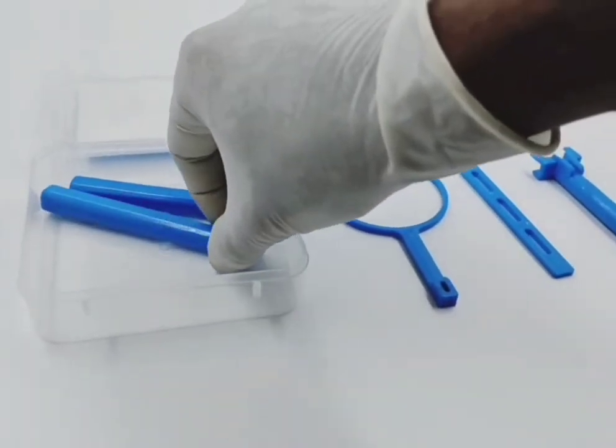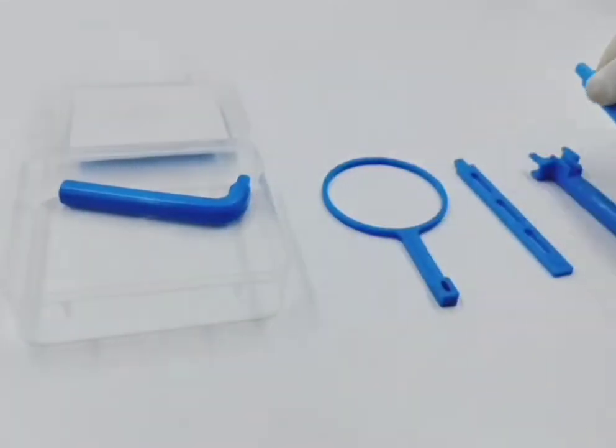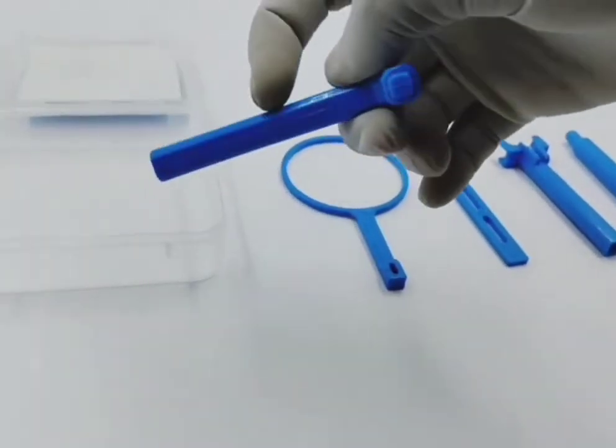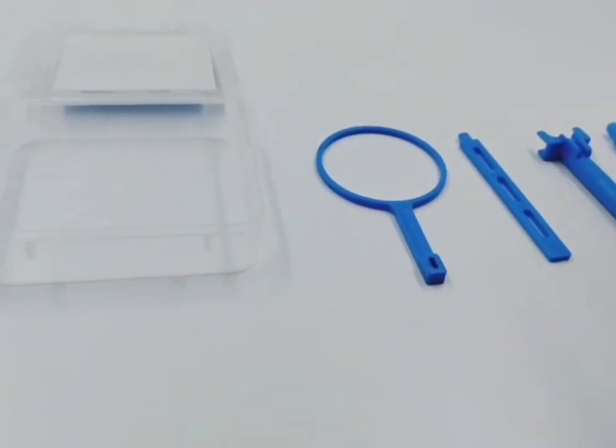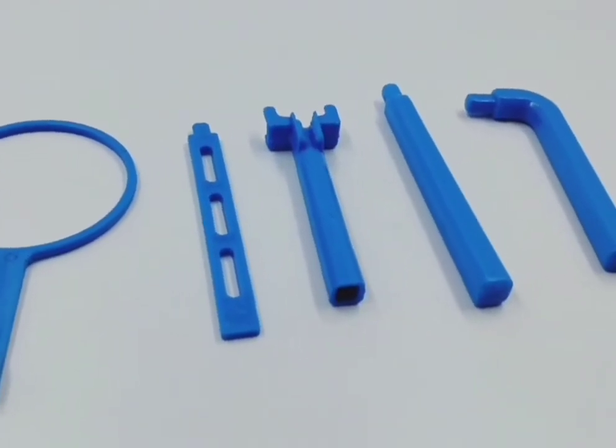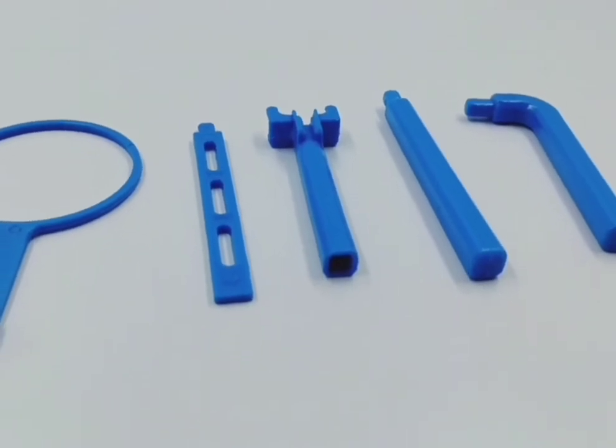Its features are: It has excellent sensor protection, dental x-ray sensor positioner. It is for dental sensor with line. It is maximum comfort for the patient.